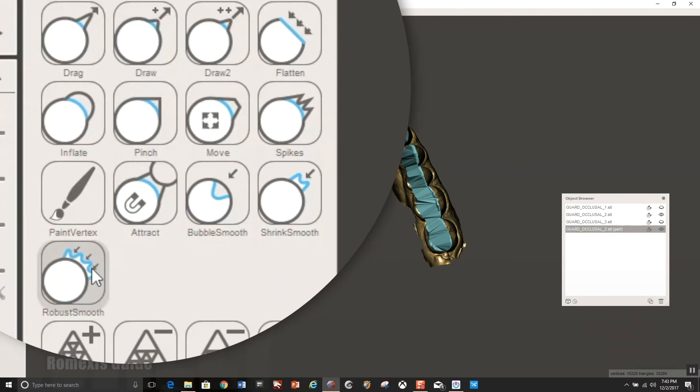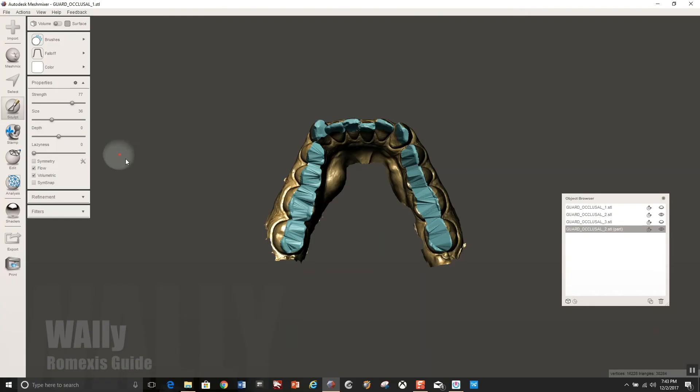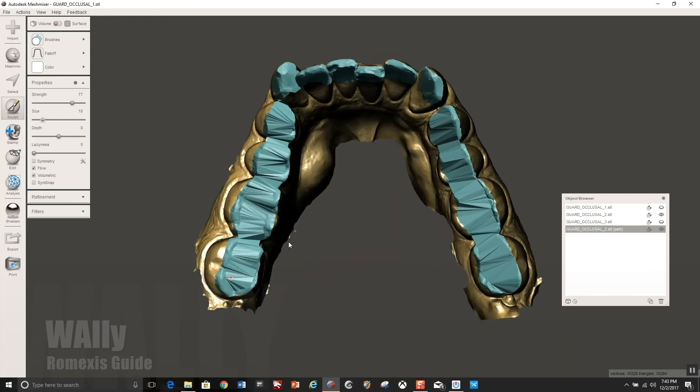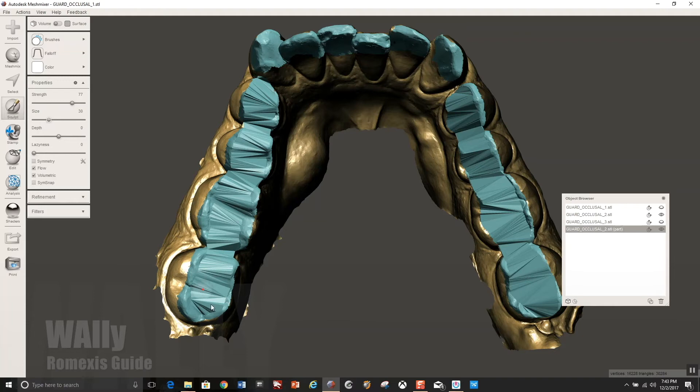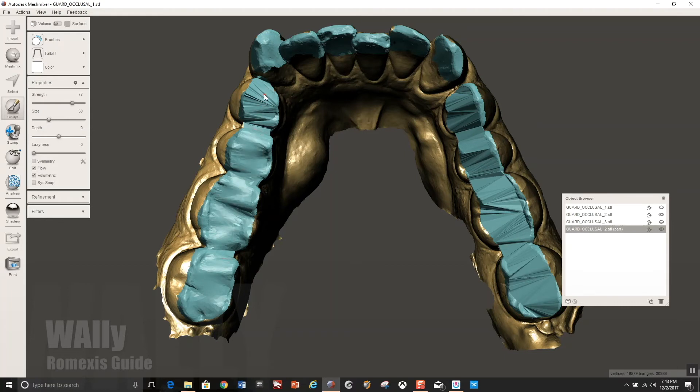And you have to be careful with this because you don't want to distort and deform the cusp tips, which are the most important parts. You're really just trying to even out the valley, the central groove area. Very carefully. So you're just going to, and I like to do it this way because I have more control over what I'm doing here and you're not going to touch the anteriors. You're just going to leave those be.